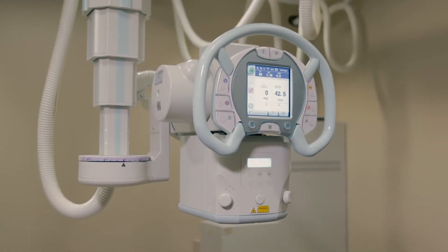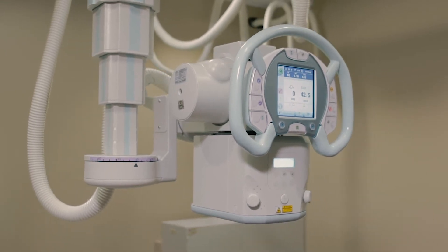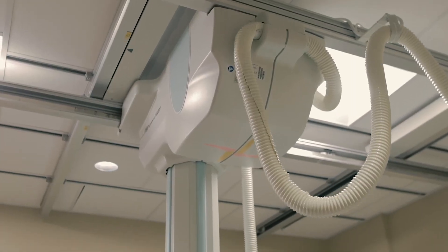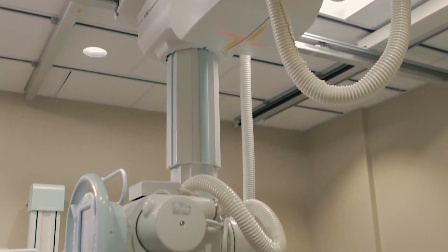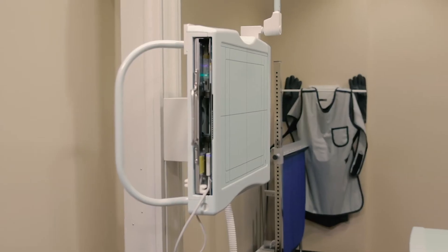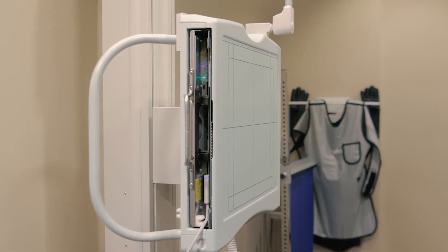The next-generation collimator reduces x-ray dose to the patients by automatically switching to the optimal filter for each selected APR, minimizing unnecessary exposure while obtaining high-quality radiographic images. Shimadzu also reduces patient dose with its removable grids located in the table and wall buckies.